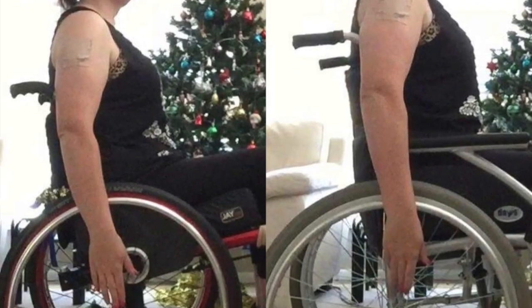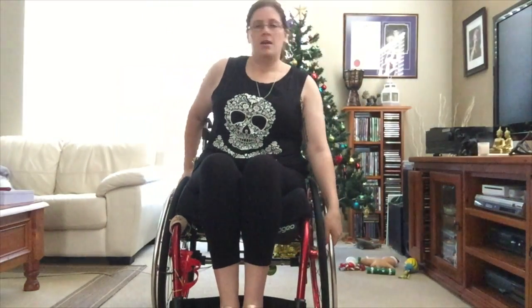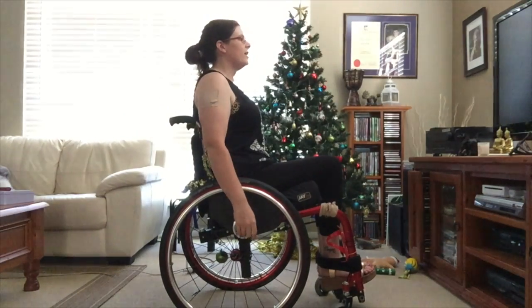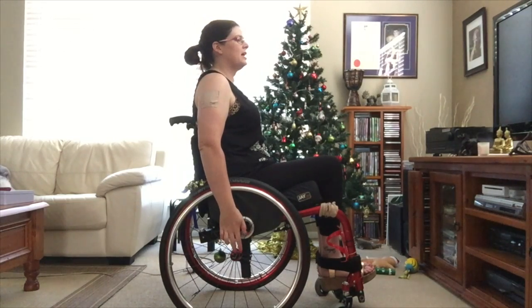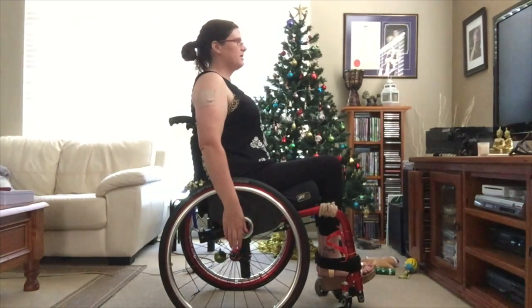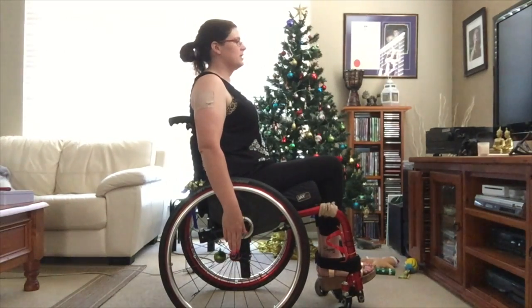One of the first things I want to look at is seating — how you should be seated in your chair. If you are sitting in your chair nice and still, nice and upright, with your hands hanging down by your sides, your fingertips should touch the centre hub area. They could be touching the top, the bottom, or the middle, but they should be touching them basically.